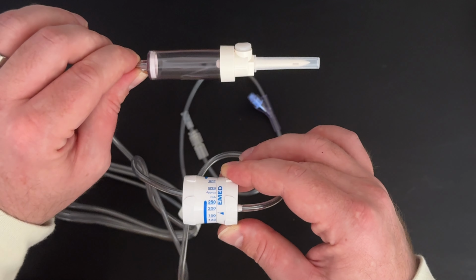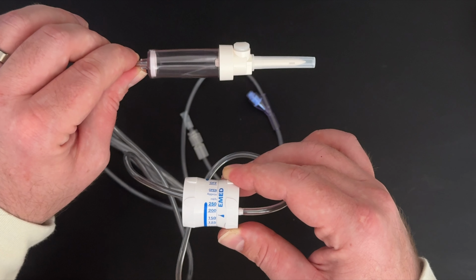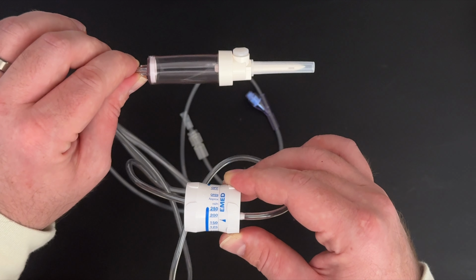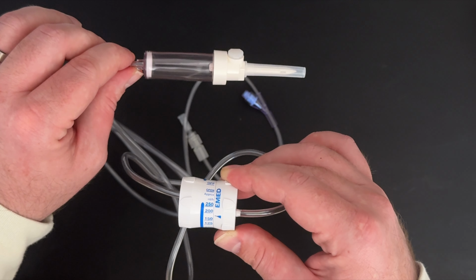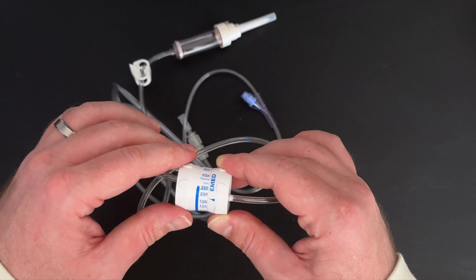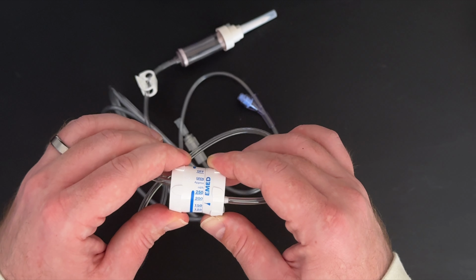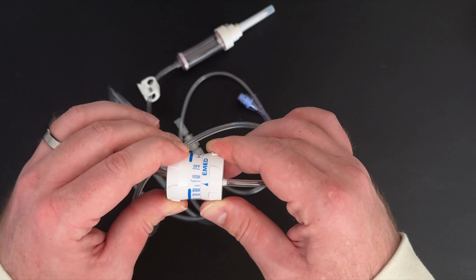To get the correct flow rate, you will have to turn the dial-a-flow up much higher than the correlating flow rate on the dial-a-flow regulator. With extremely viscous medications such as IVIG, you may have to turn the dial-a-flow regulator close to the open section to get the correct drip rate in the drip chamber.